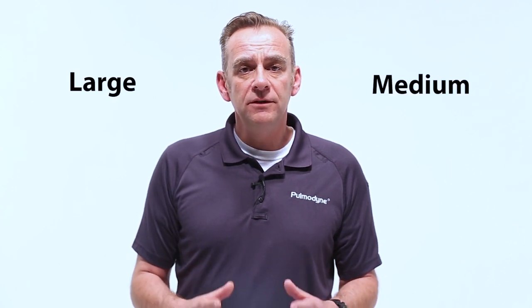The GO-PAP comes with the Bi-Track ED mask, and it comes in two sizes, large and medium. Medium is the most popular size and will fit about 80% of your patients. The Bi-Track ED mask is a floating mask and is designed to fit on the patient comfortably.